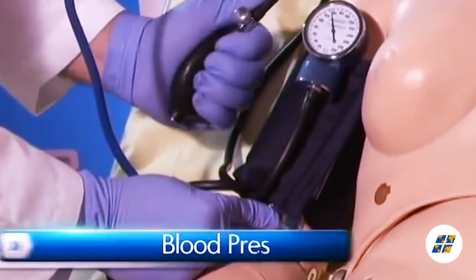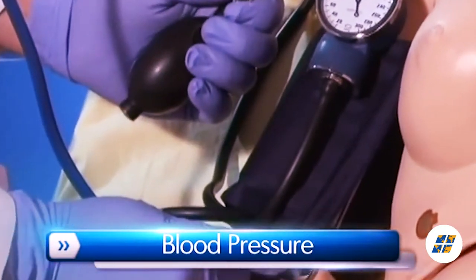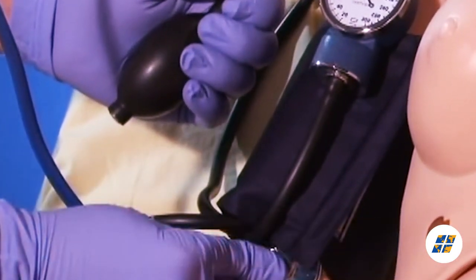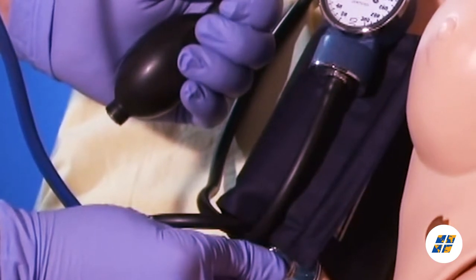Programmable blood pressure can be read using a sphygmomanometer, and users can auscultate the Korotkoff sounds.